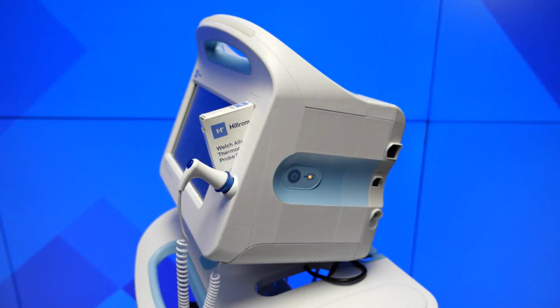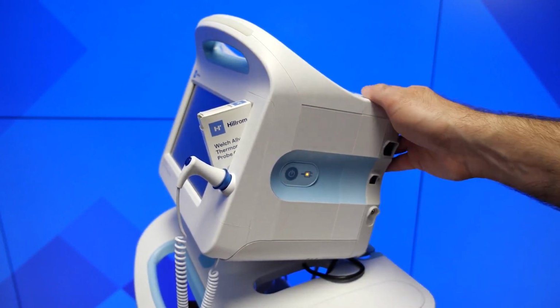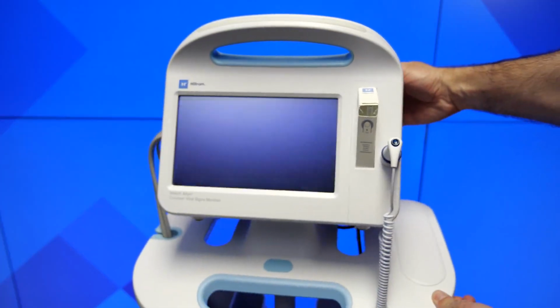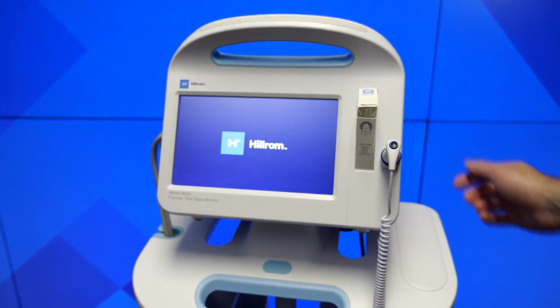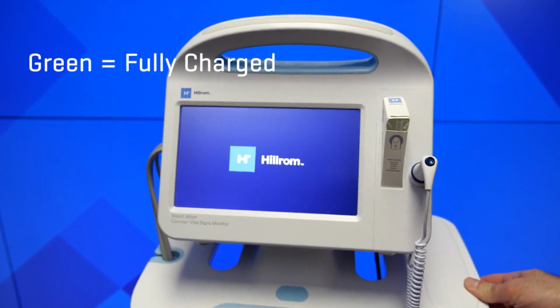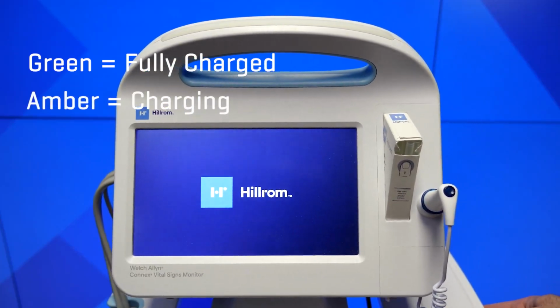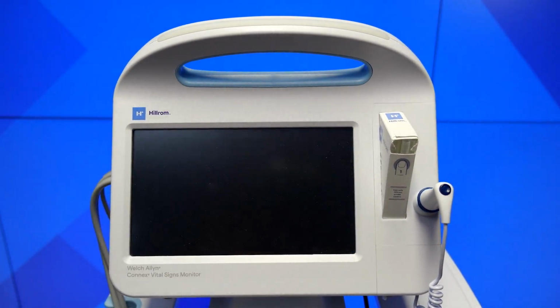Now let's review the physical device and the software user interface. To power on the device, push and hold the blue button on the right side of the device. Once you do that, a small light next to the power button will flicker, and the splash screen will appear as the device undergoes its boot-up process. The power light will glow green when the device is fully charged and/or amber when charging. If the device is already on but in sleep mode, it can be reactivated by just touching the screen.